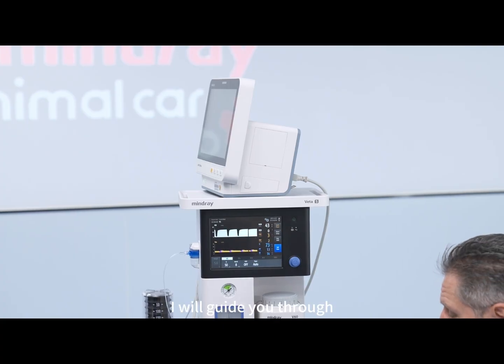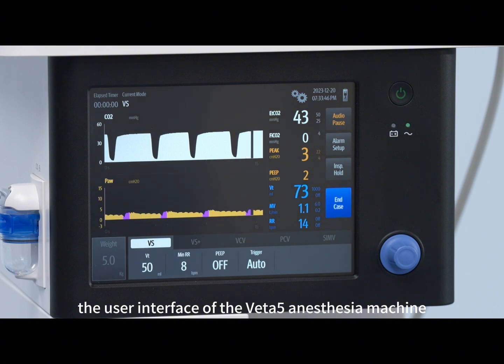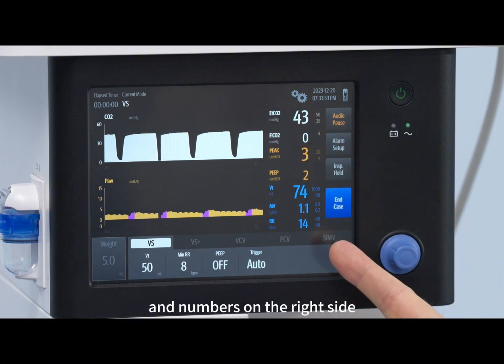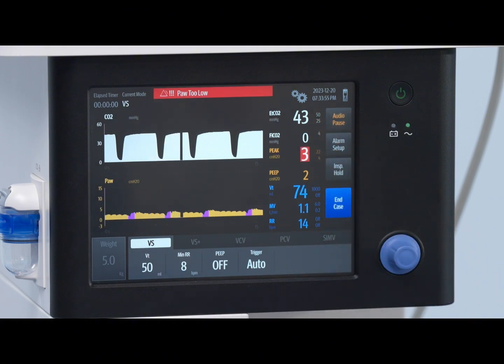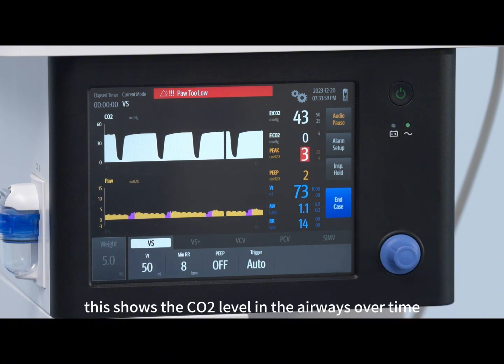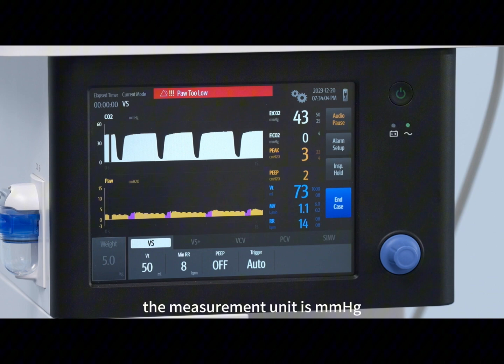In this video, I will guide you through the user interface of the Veta5 anesthesia machine. There are curves on the left and numbers on the right side. This is the Capnograph curve here. This shows the CO2 level in the airways over time. The measurement unit is millimeters of mercury.